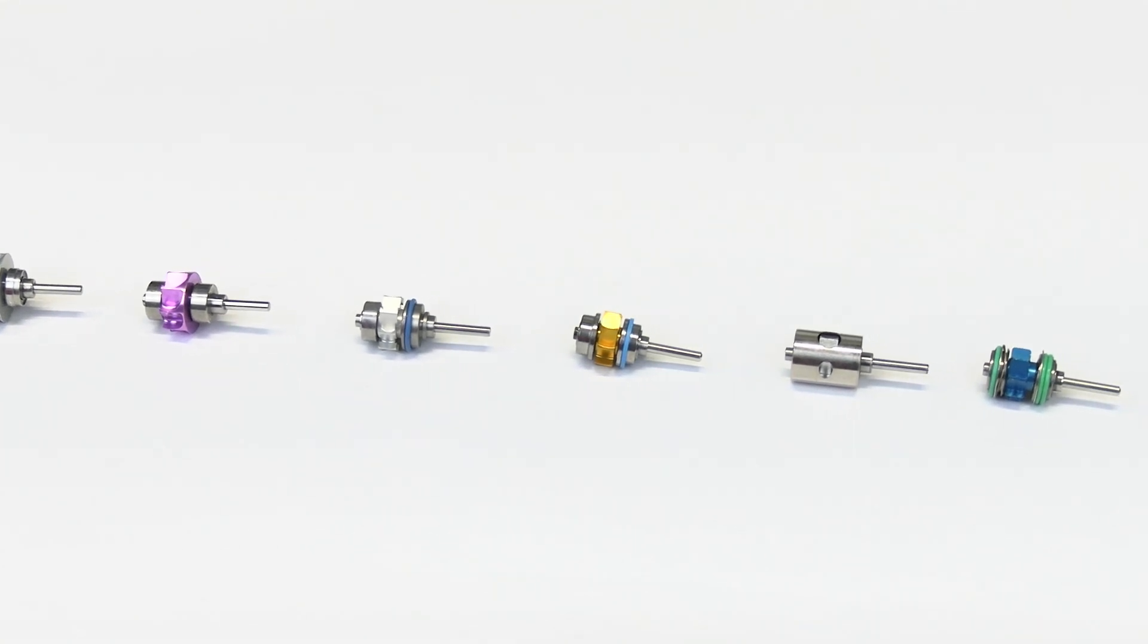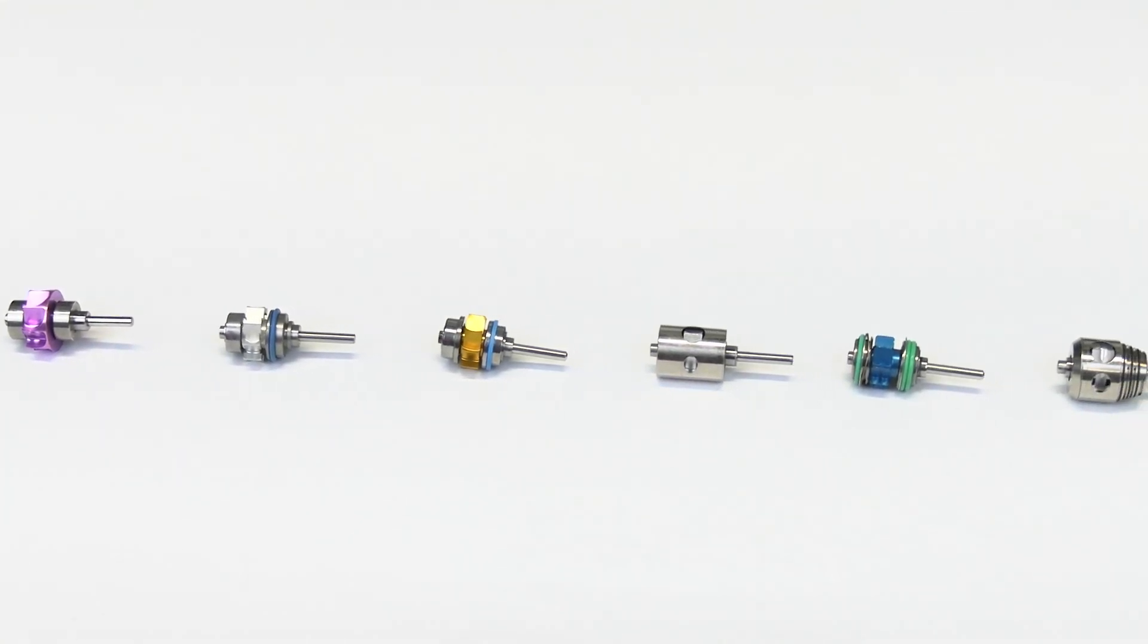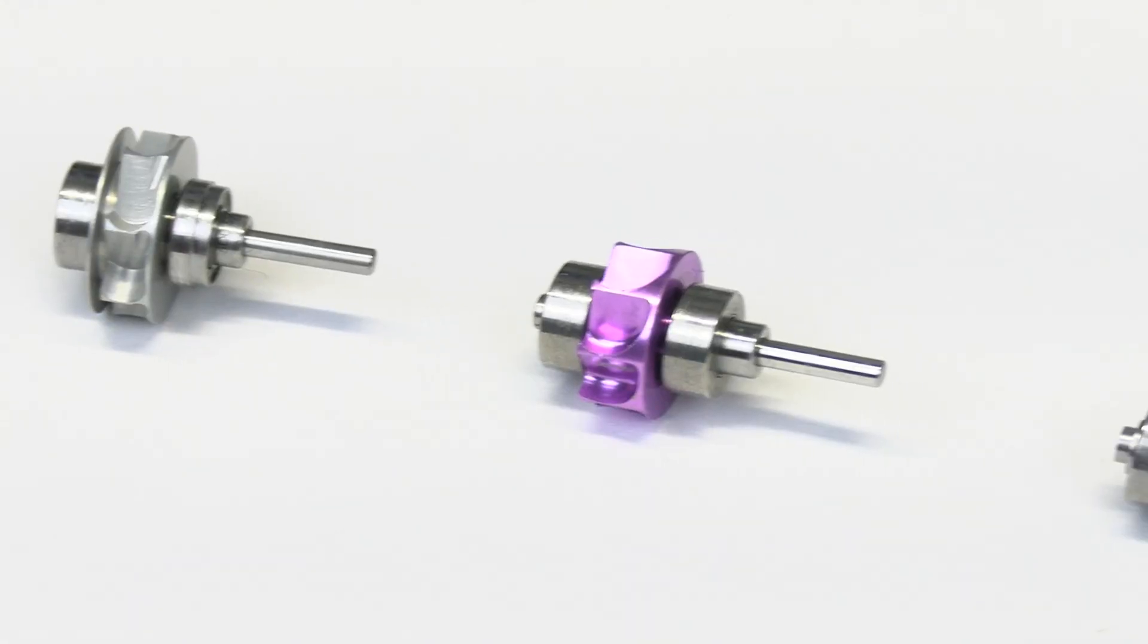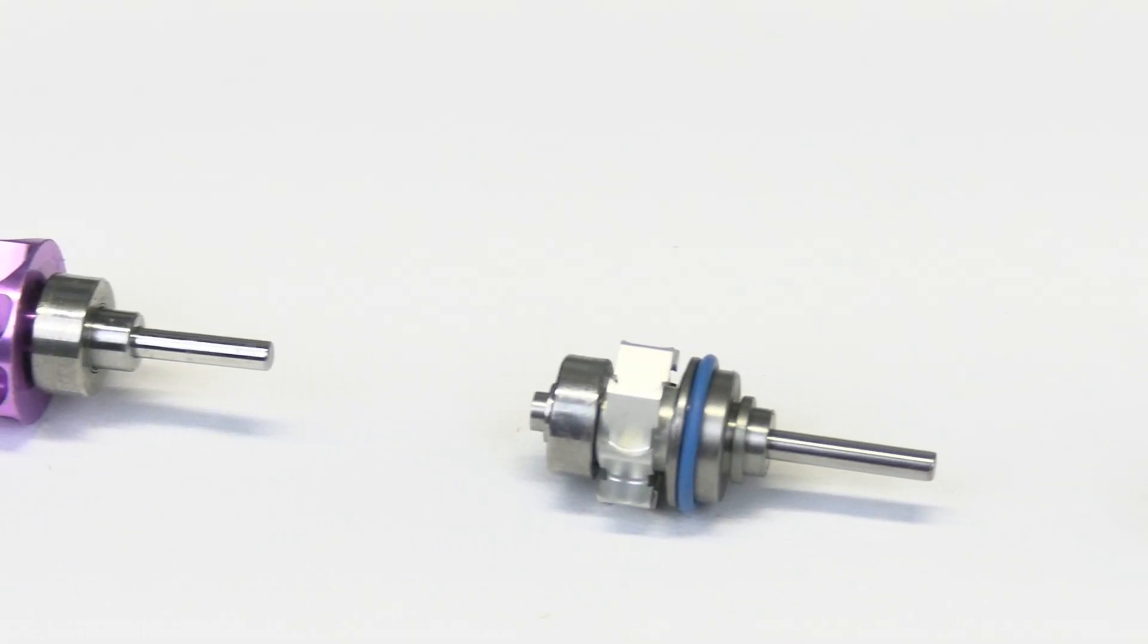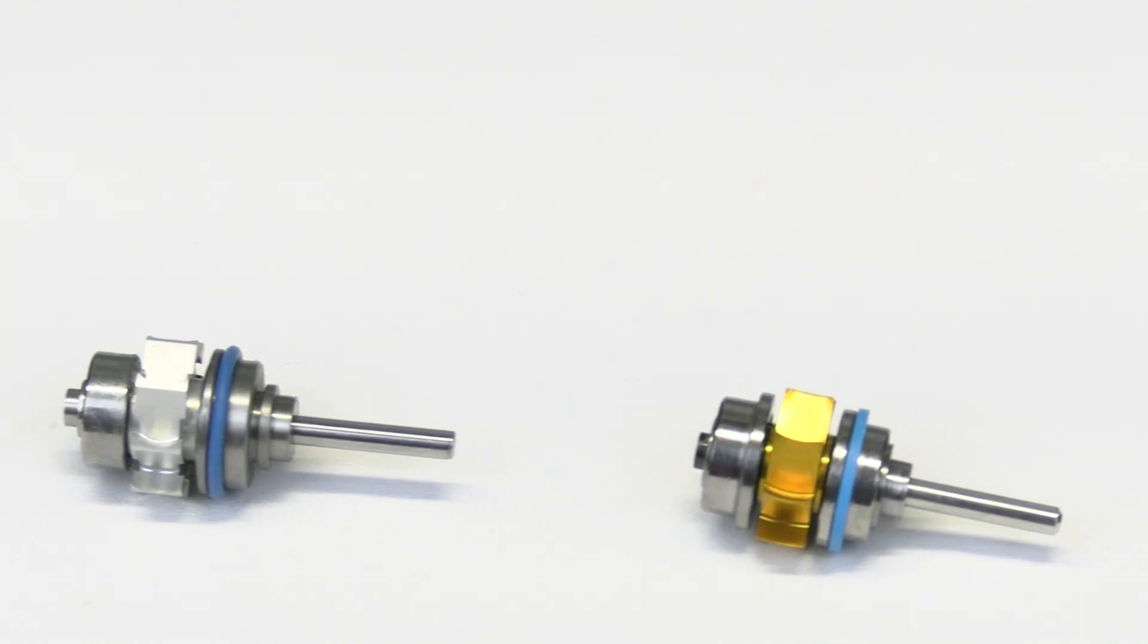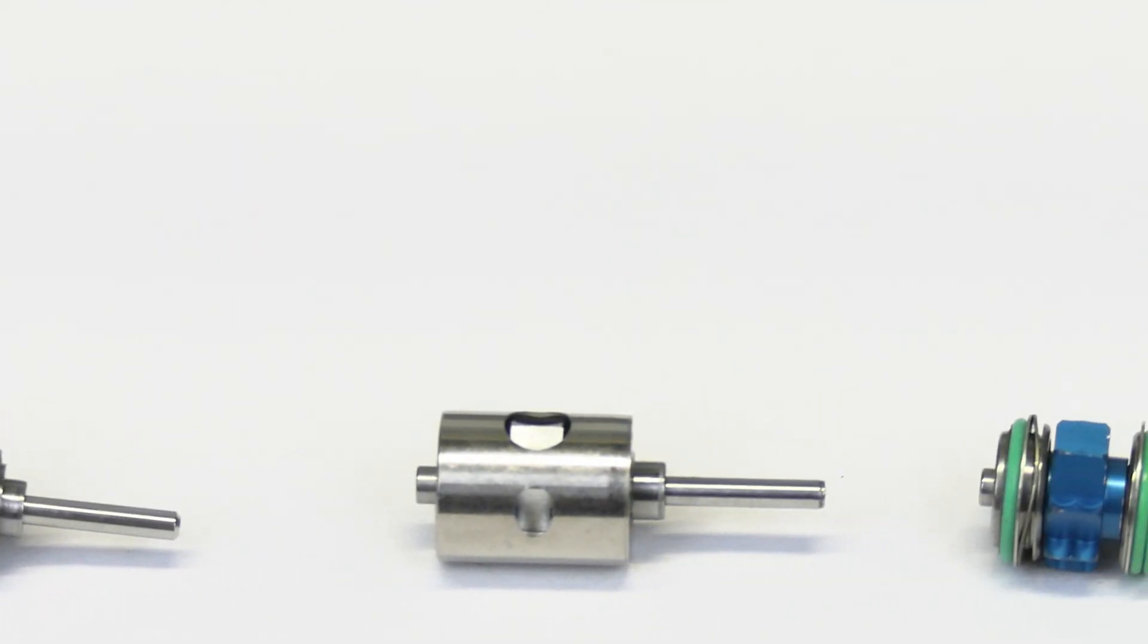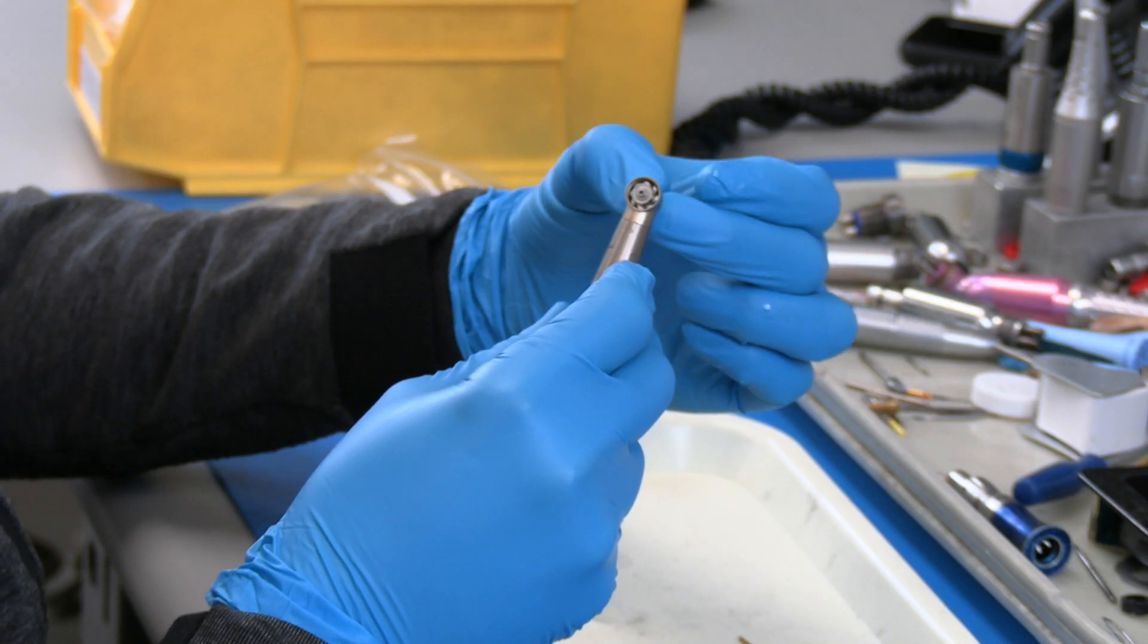For DIY dental offices, we offer a selection of turbines, providing flexibility and options to suit diverse needs. Whether you're looking for specific couplers or turbines, our accessories are designed to enhance the functionality and performance of your handpieces, ensuring a comprehensive solution for your dental practice.